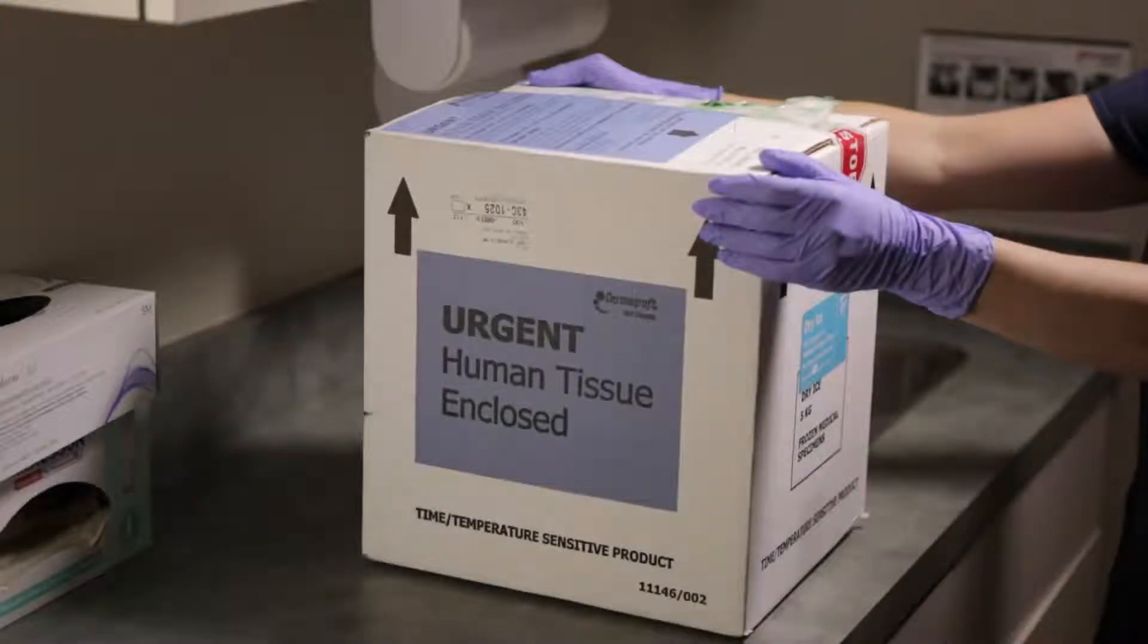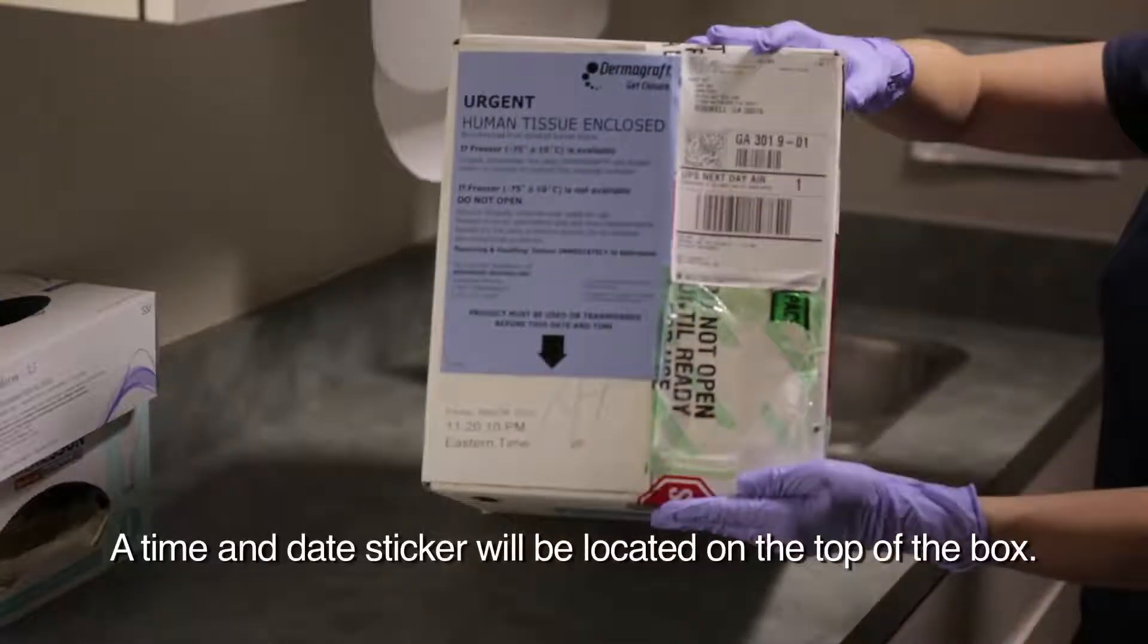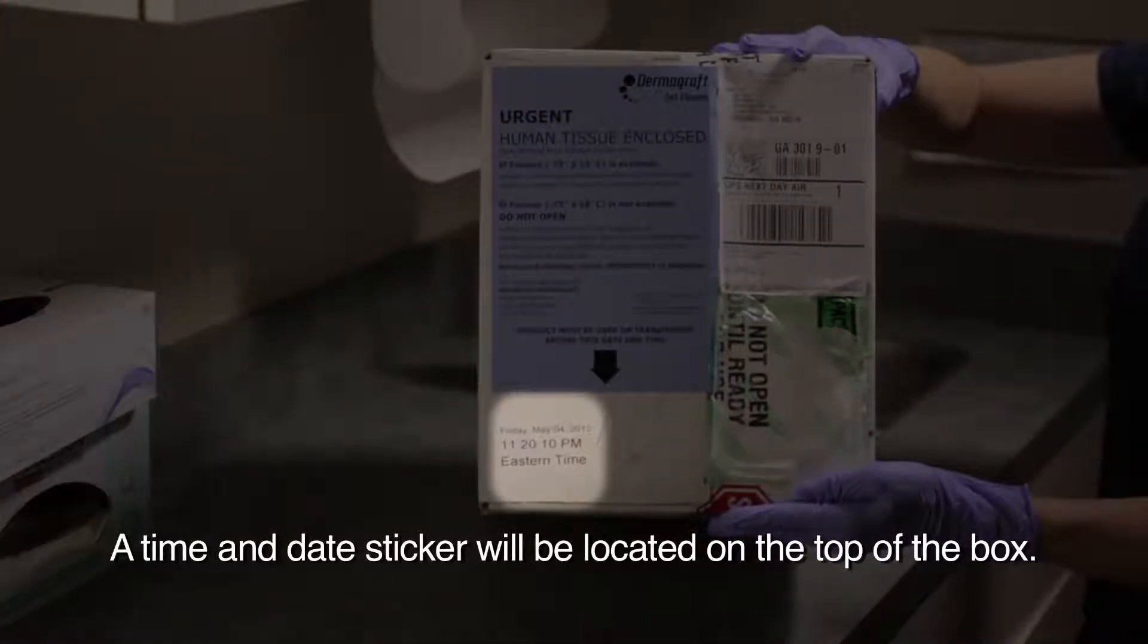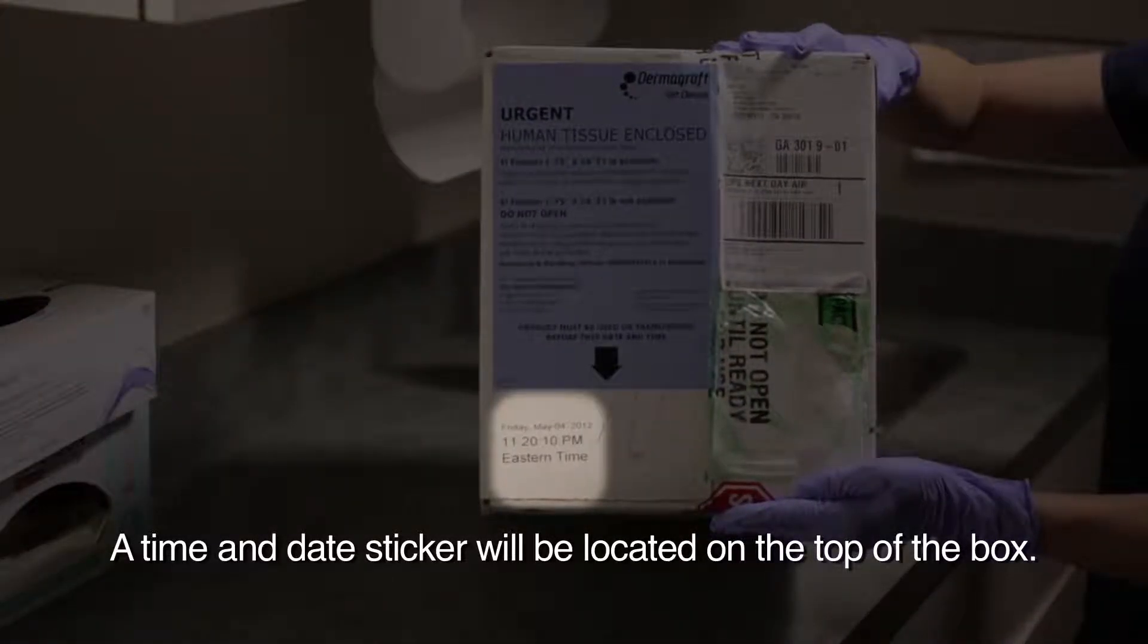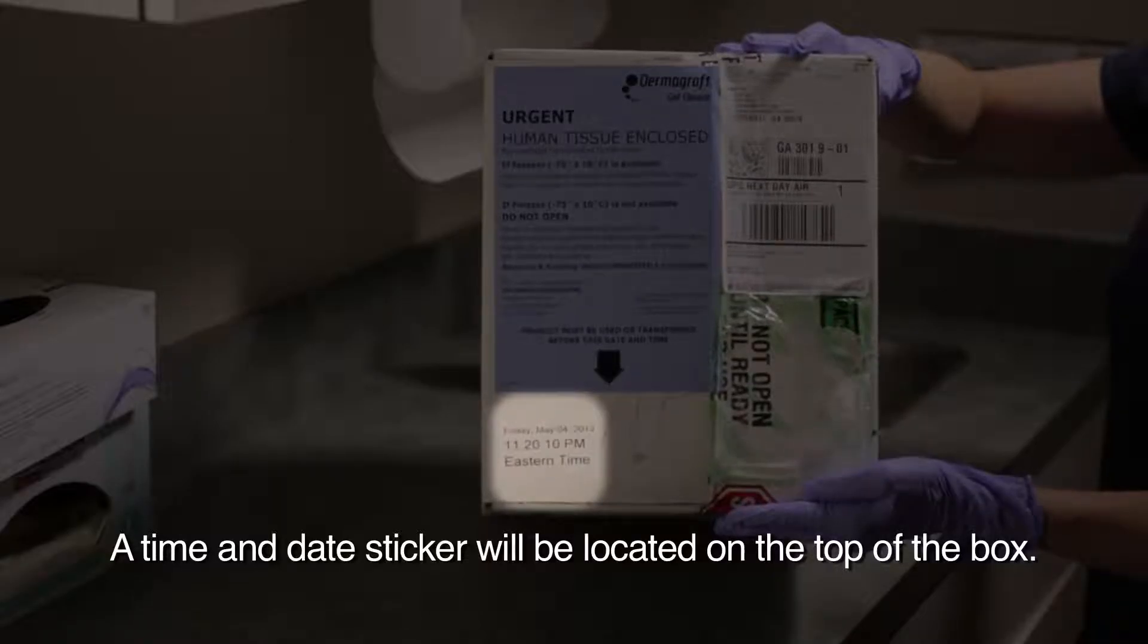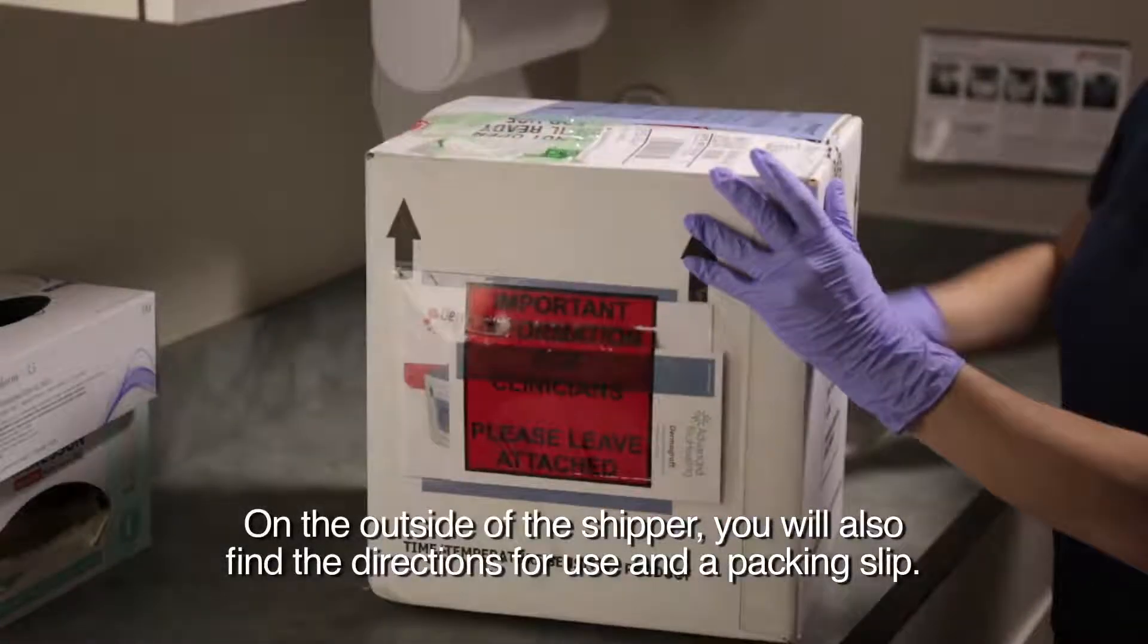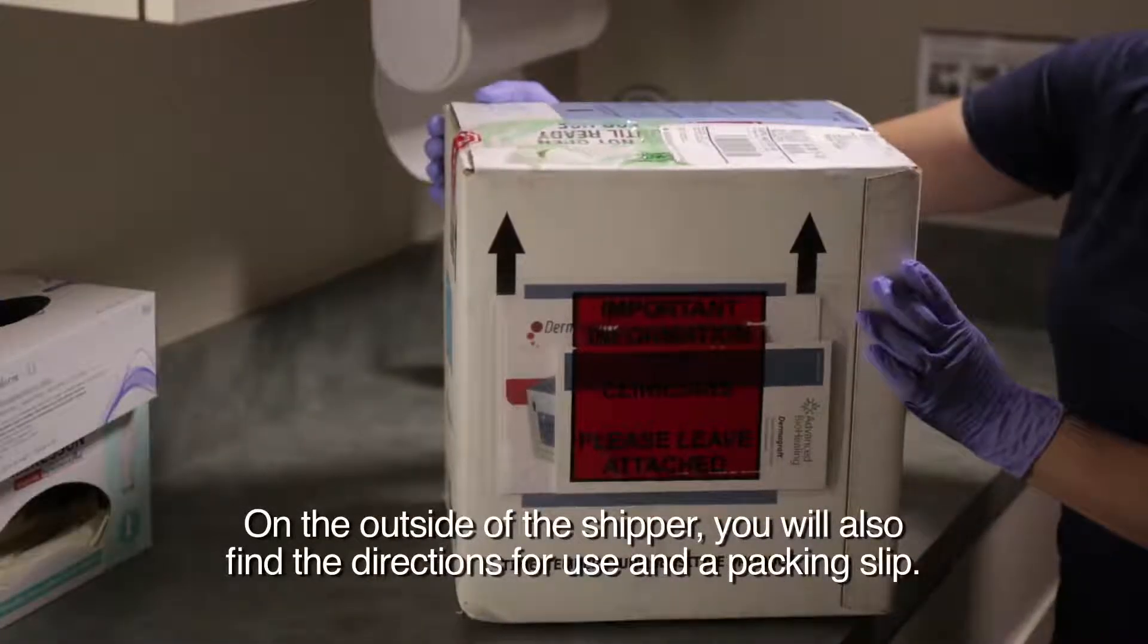The Dermagraft product is sent to you in a special shipping container that will maintain the correct storage temperature. A time and date sticker will be located on the top of the box, indicating the expiration of the shipper. The product must be used or transferred to an appropriate storage freezer by this time. On the outside of each shipper, you will also find the directions for use and a packing slip.